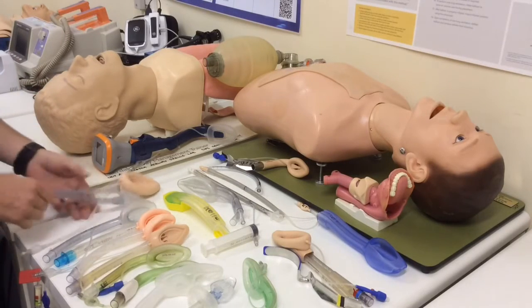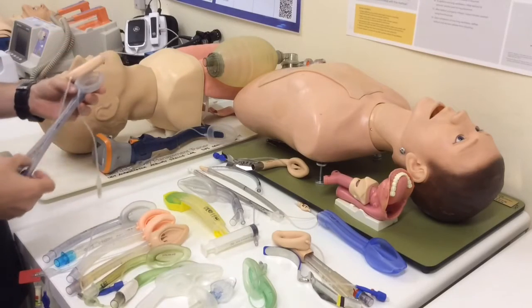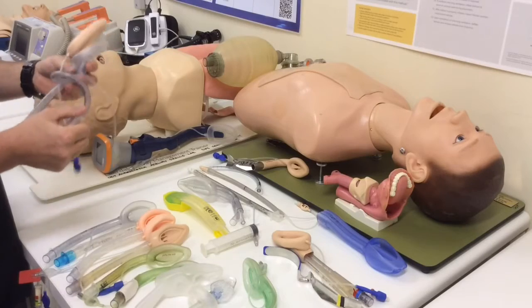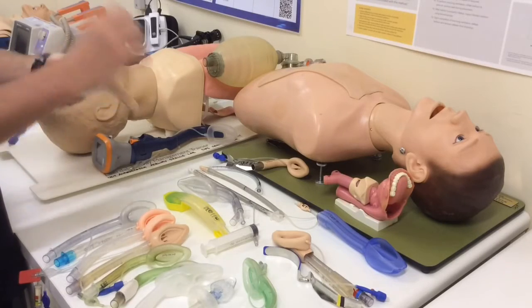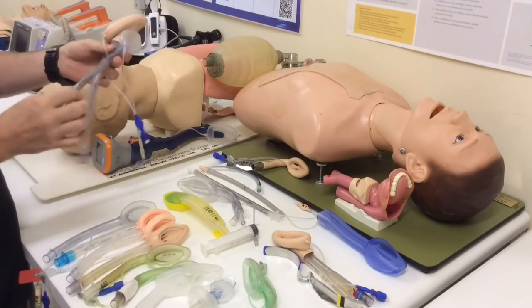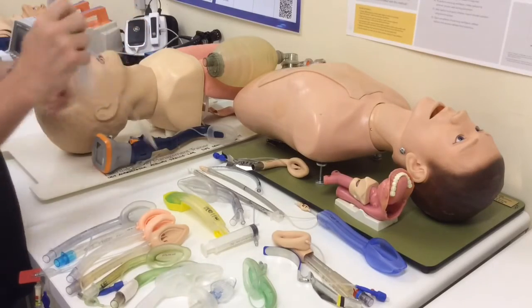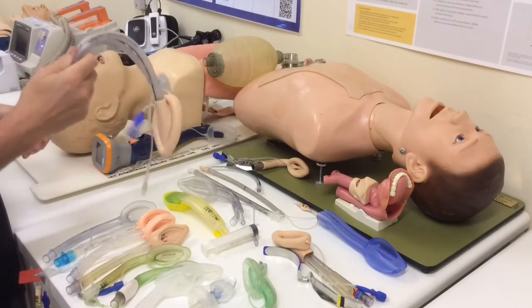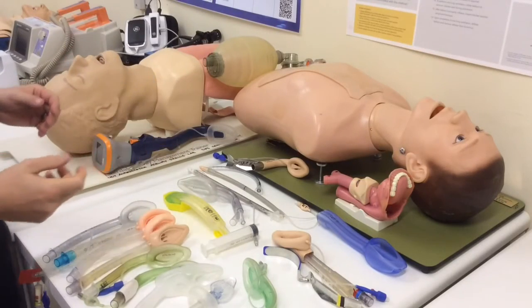And we still have specifically designed supraglottics for this in the operating theatre, and some for specific indications, such as these flexible LMAs. They're designed to be placed and then you can take the tube down and out of the way of the surgeons. They can operate on the eyes or do ENT procedures. But really, you can imagine trying to use one of these floppy devices in an emergency setting would be probably quite a bad idea. So let's eliminate those from the equation.